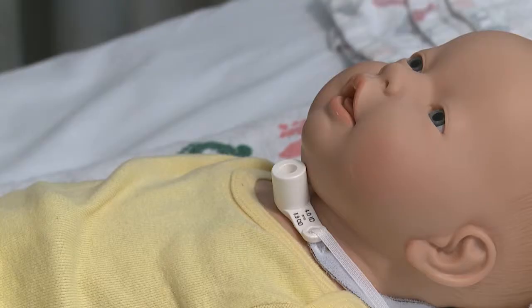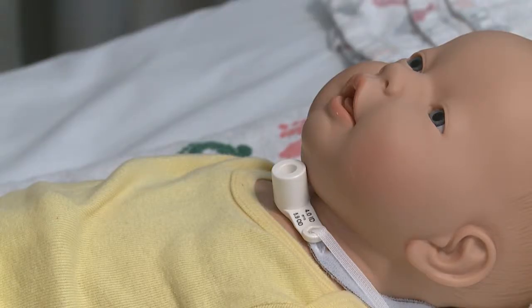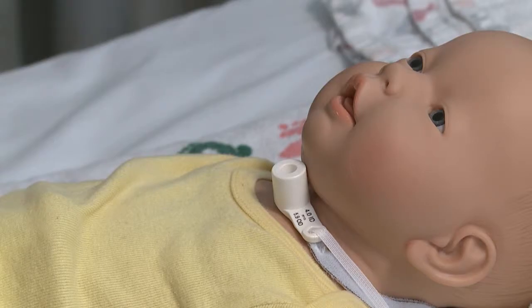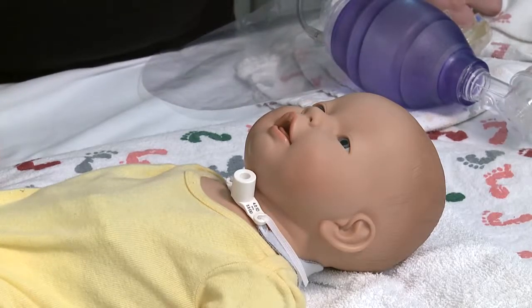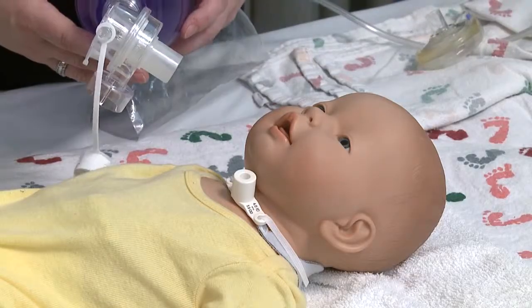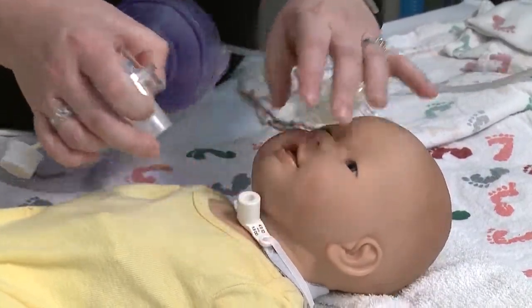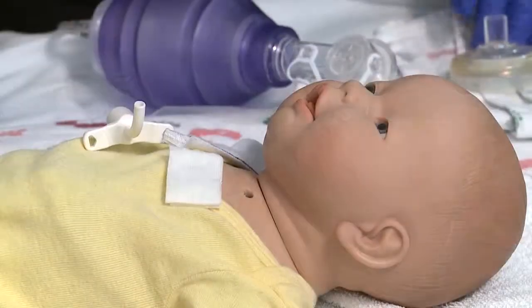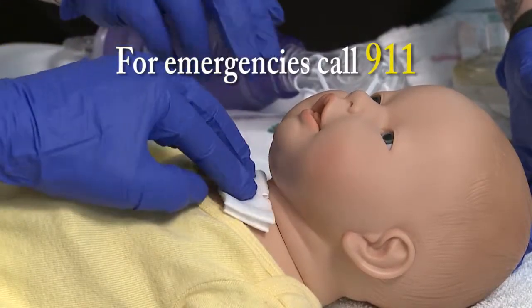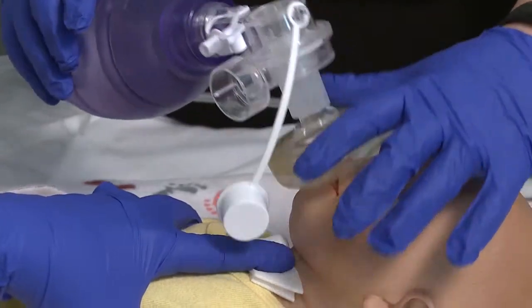If you are unable to replace the same size trach, attempt to use the smaller trach. You may also need to emergently change the trach if there is an obstruction or it accidentally comes out — that is why it is important to always have your emergency supplies with you at all times. If you have an emergency, you would perform BLS as you would for any other child. The only difference would be that your ambu bag would attach to the tracheostomy to deliver breaths. If you do not have an ambu bag, it would be mouth to trach. In the event of an emergency where the tracheostomy becomes dislodged and you are not able to replace it immediately, call for help, have someone block the stoma site, and use an ambu bag with a mask or mouth to mouth to deliver breaths.